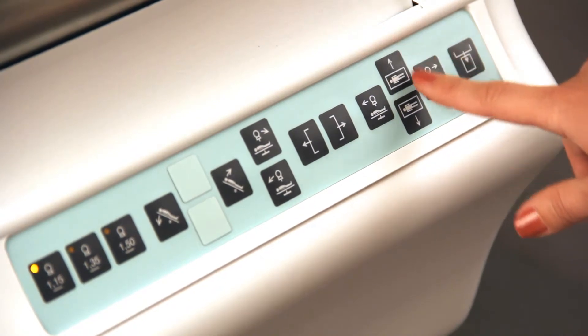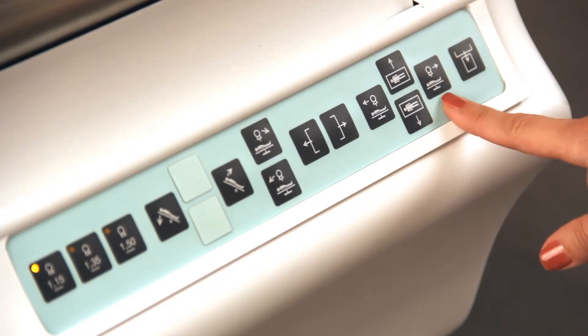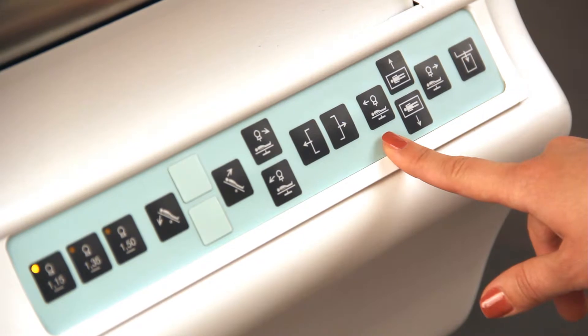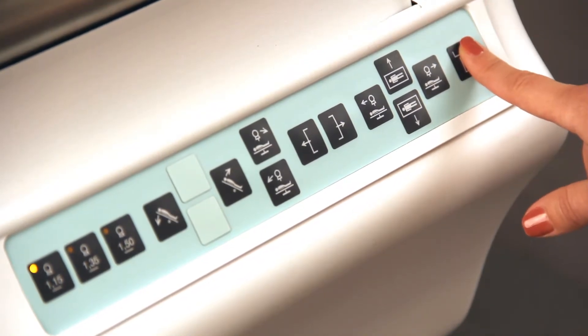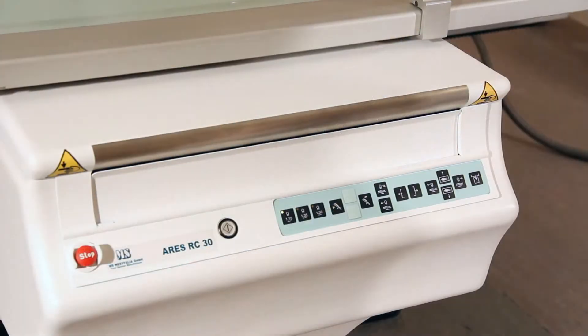Transversal tabletop movement and longitudinal movement of the radiator column. There is a button for automatic cassette loading.